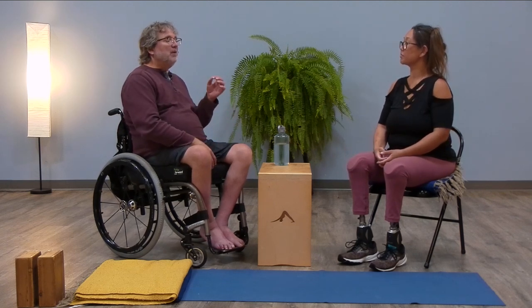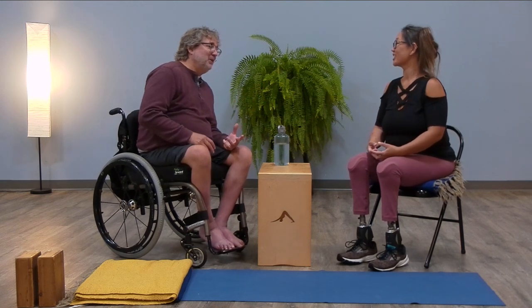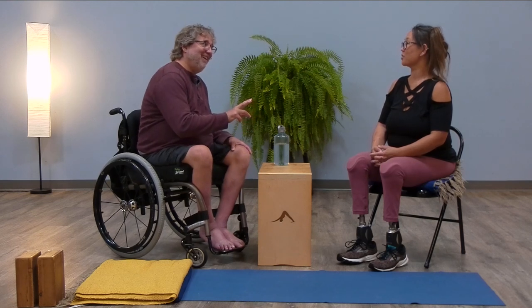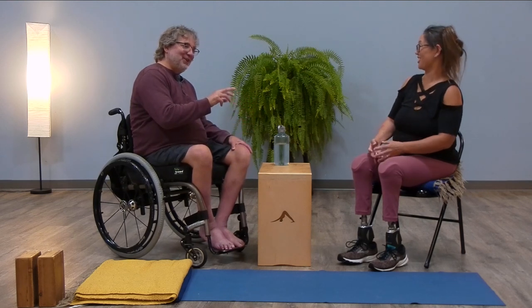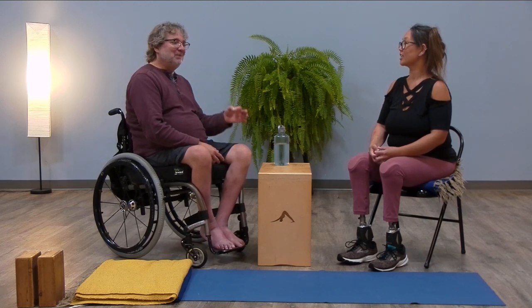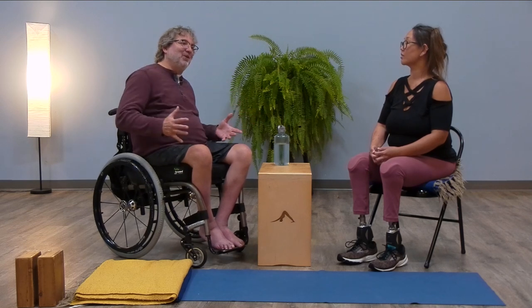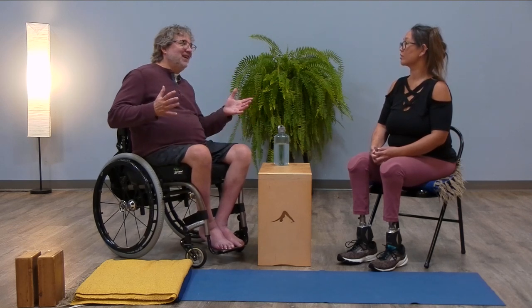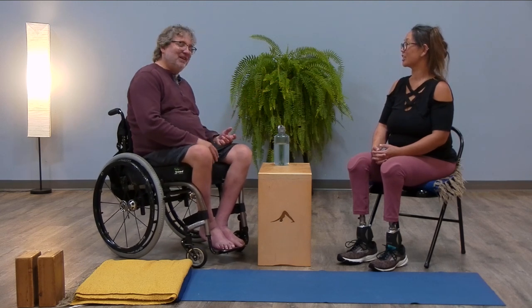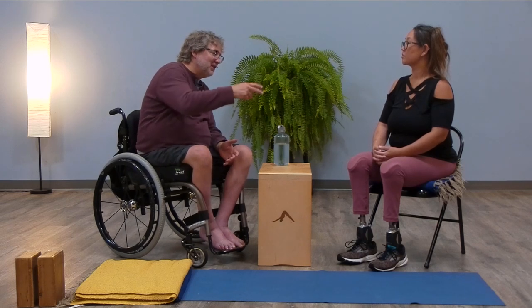Last time we were together about two months ago, you had just gotten fitted with a new set of prosthetics, and since then you've had two more. Two more, and this will be the third set coming in a little bit of time, which I think is actually really important. When it comes to your body and the things that you're going to be living with 24/7 or a big part of your day, this is a good lesson — get it right. Say a little bit about how that evolution happened the last couple months.